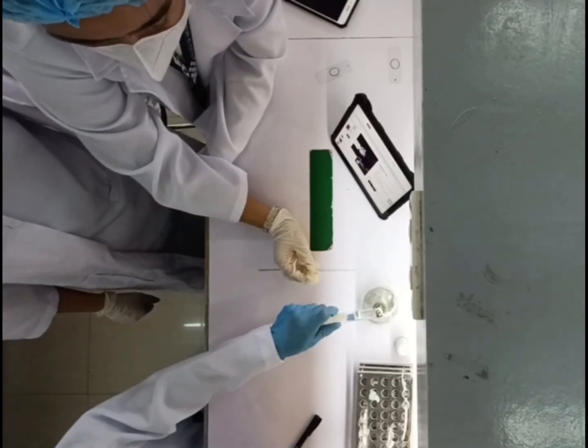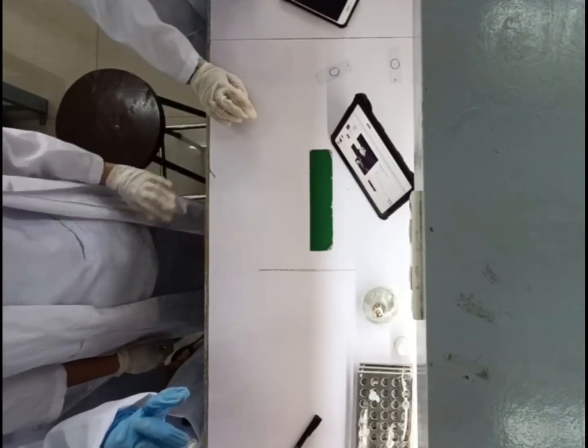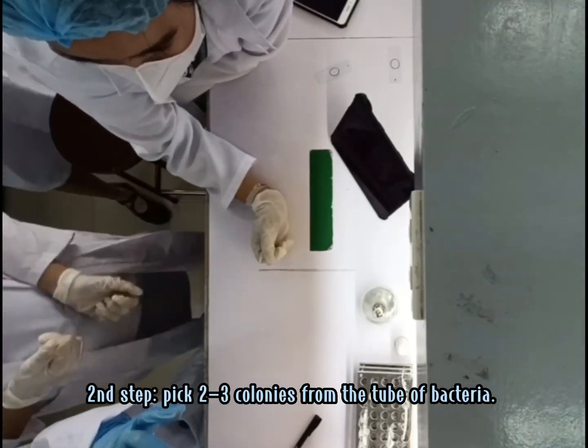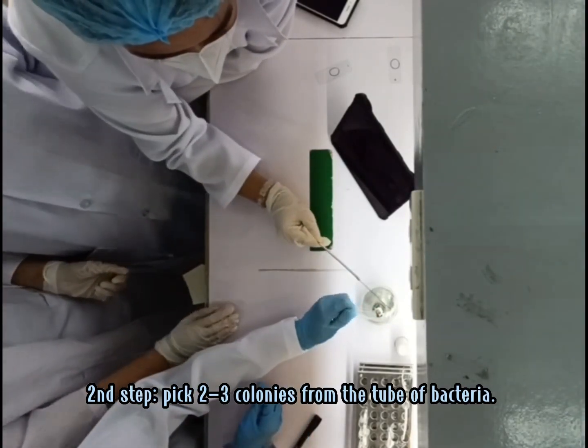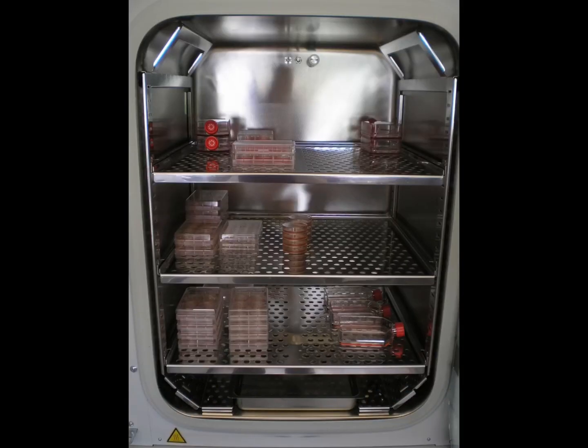We perform the tube coagulase test with 0.5 mL of diluted rabbit plasma. Take a few colonies from the tube using a sterile loop, then inoculate in the tube. After that, we need to incubate it for 4 hours at 35 to 37 degrees Celsius. After 4 hours, we need to examine the tube.